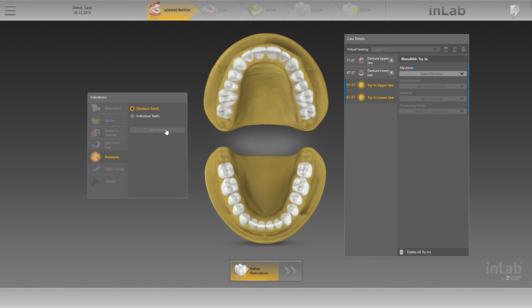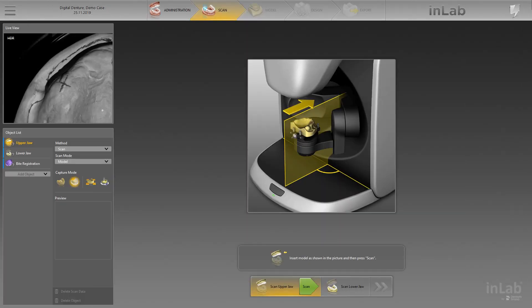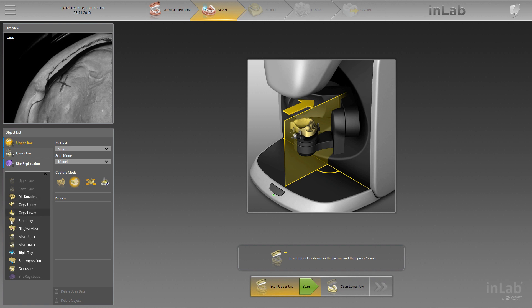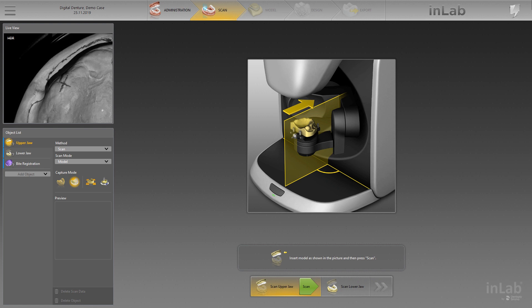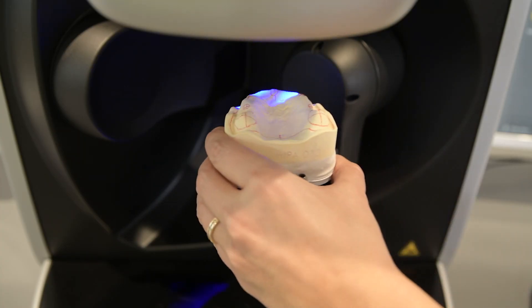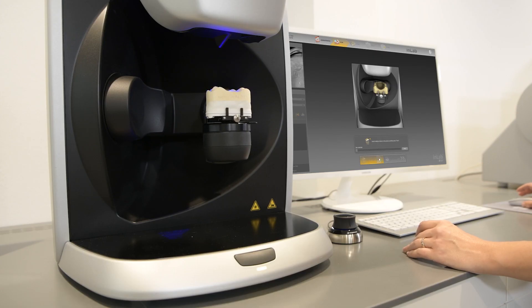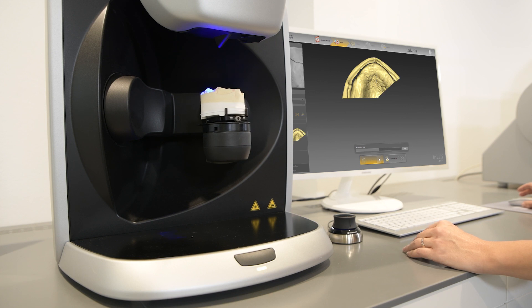Once you complete the administration phase, continue with the scan phase. If a full denture was selected in the administration phase, then upper jaw, lower jaw, and bite registration are automatically displayed in the new object list on the left side of the screen. It is possible to add other objects to import the scan as an STL file or to change the capture mode if needed. Once the upper jaw has been positioned correctly in the scanner, as indicated in the help text and information picture, the scan can be started by clicking the green Scan button. Alternatively, the upper and lower jaws could also be scanned from an impression.